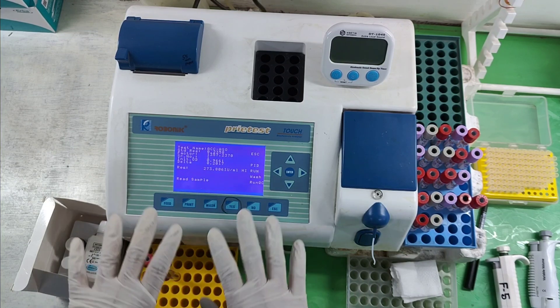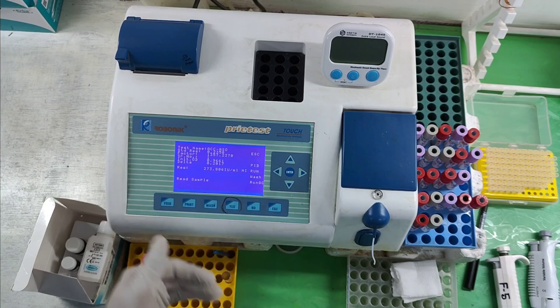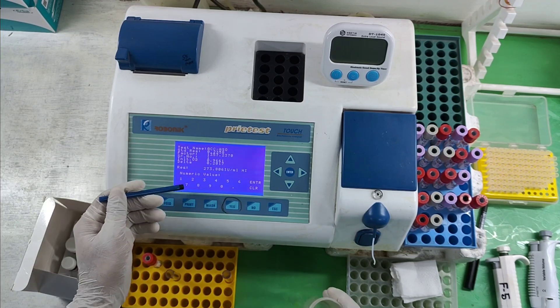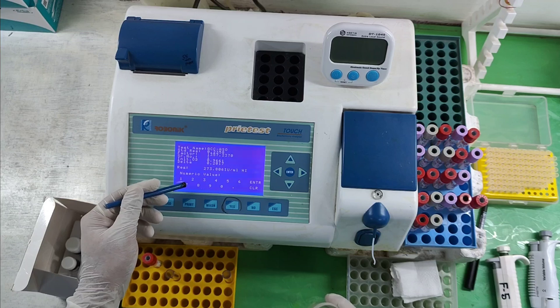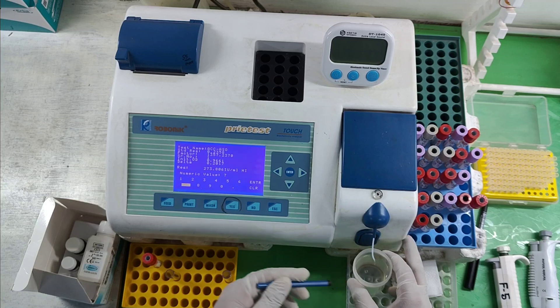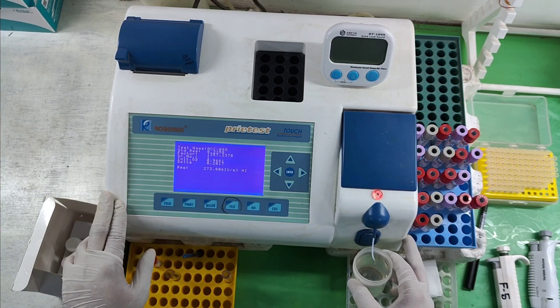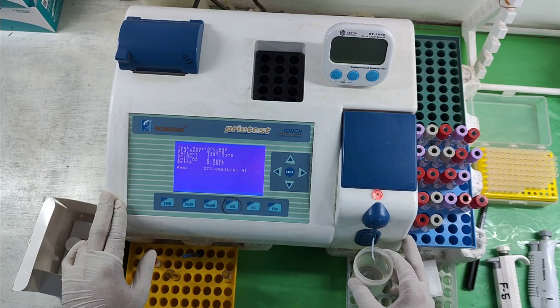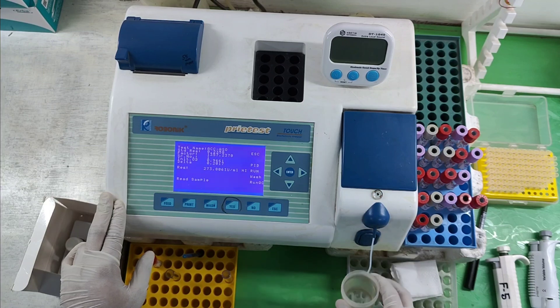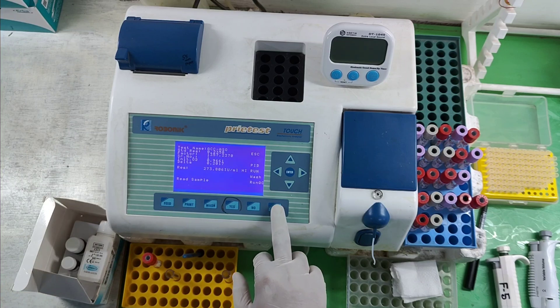Now the test result is shown and we have to wash the machine before leaving the test. I am going to run the wash 7 times — the distilled water is in the probe — press enter. It's done; now we have to exit the ASO test.